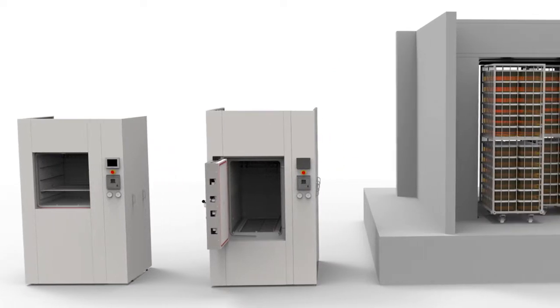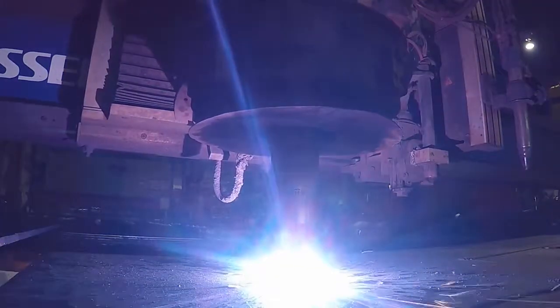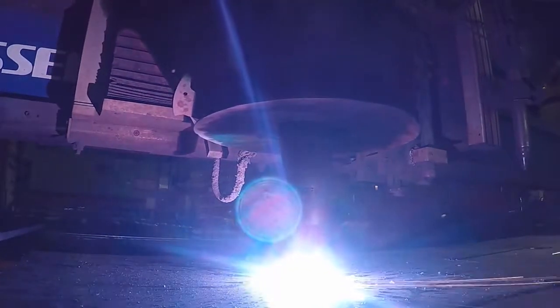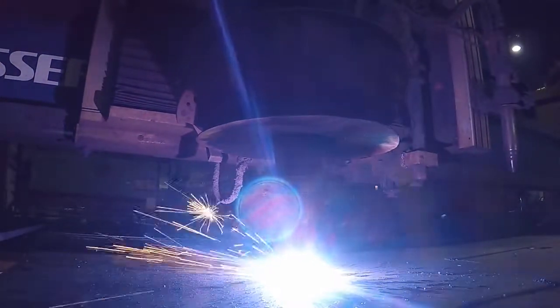We design and manufacture sterilizers for small, medium, and bulk throughput. Our raw plate-to-FAT approach to sterilizer production begins with the plasma cutting of the chamber, jacket, and door components to prepare for fabrication.